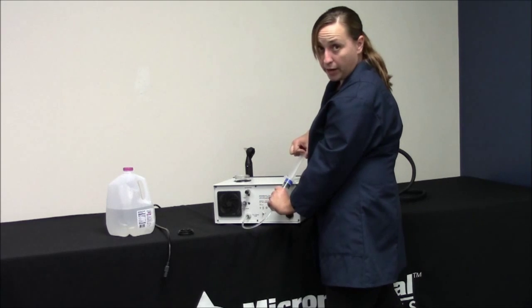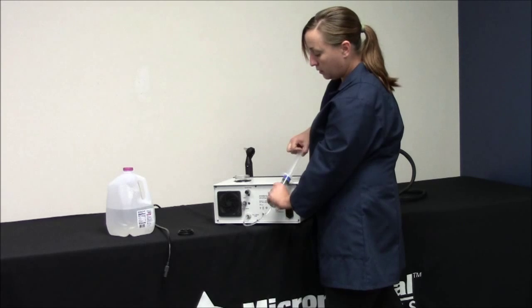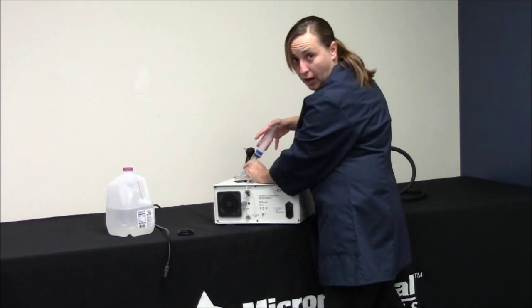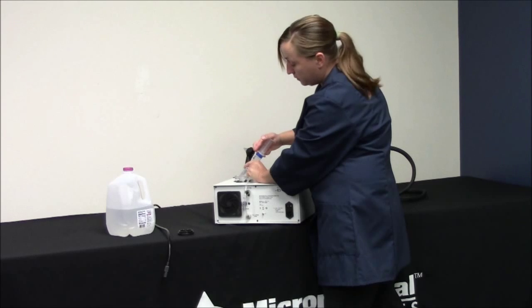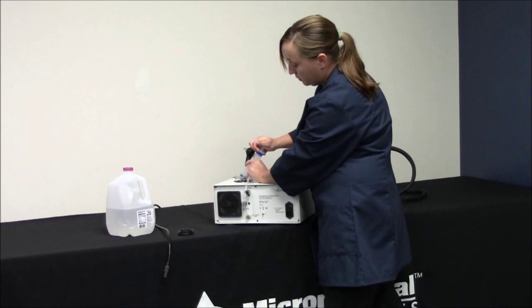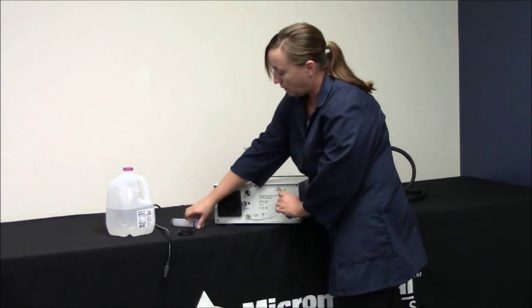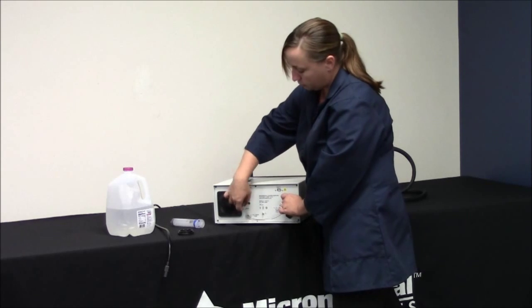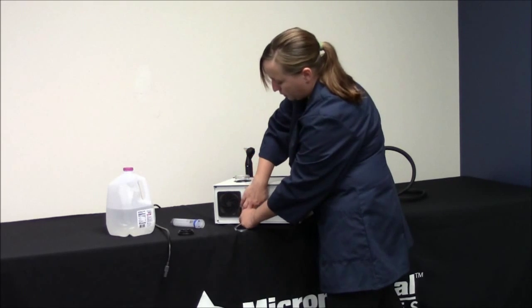Since I do not see any more air bubbles coming out, I know that I have done a good job and that all the air is drained out of the system. So I will return the valve back up to the run position. I will disconnect my tube.